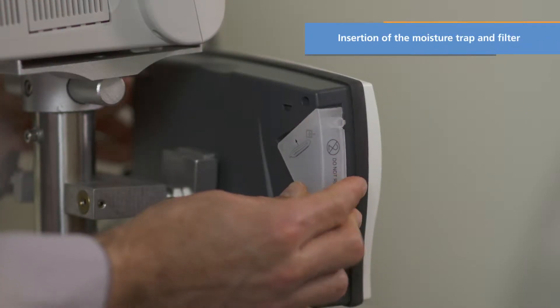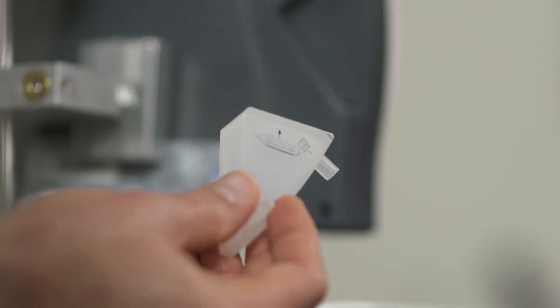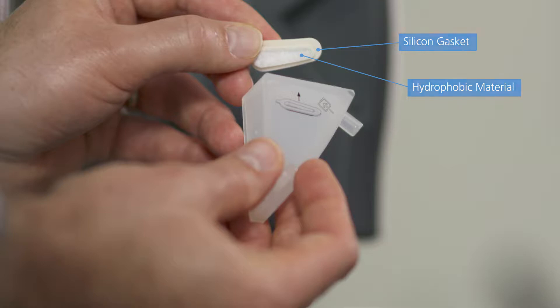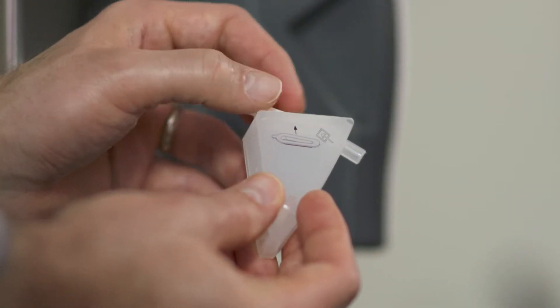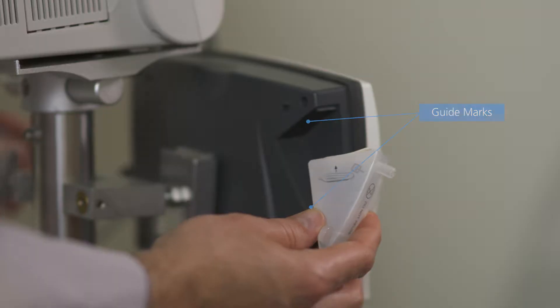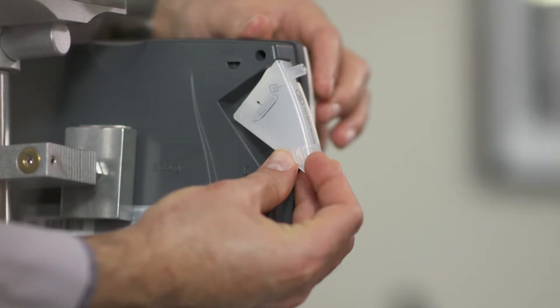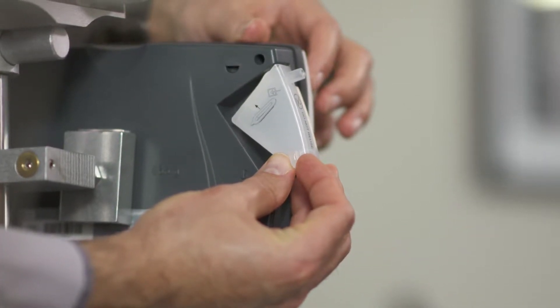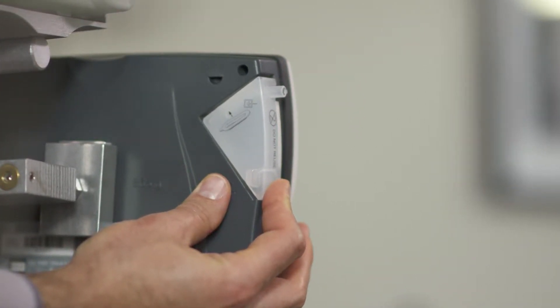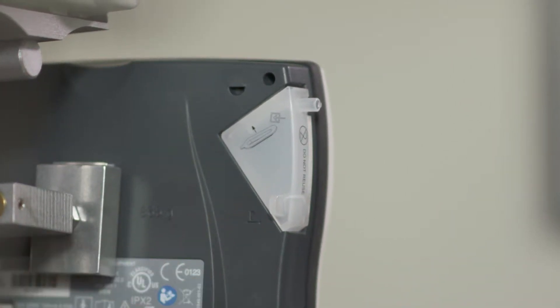First, start with proper insertion of the single patient use moisture trap and filter. Place the filter in the moisture trap so the silicone gasket faces up and hydrophobic material fits inside the moisture trap opening. Using the guide marks on the back of the monitor, align the groove at the top of the moisture trap with the ridge at the top of the trap housing on the monitor. The trap is tilted in top first, then bottom. Press the moisture trap into position using the tab. The moisture trap should be flush with the side and back of the monitor.